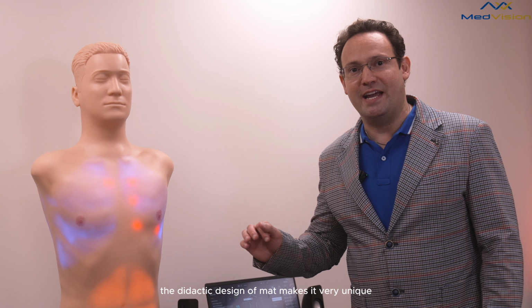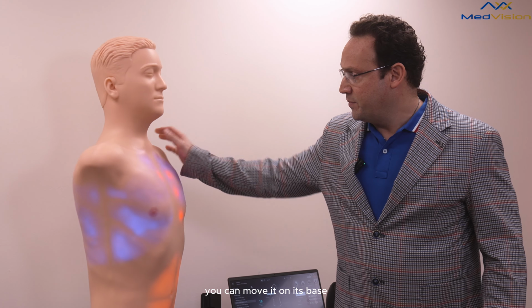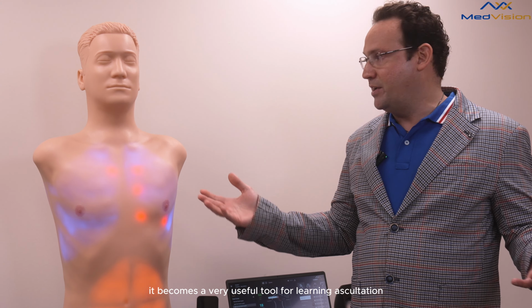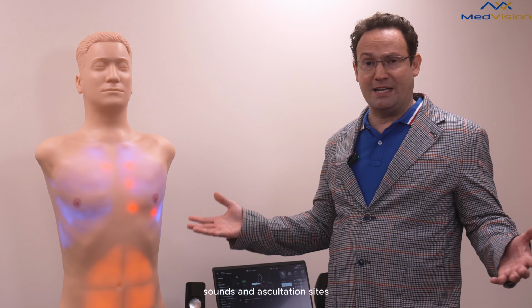The didactic design of MAT makes it very unique, where you can write on the skin, you can move it on its base, and then it offers 3 modalities of learning with the visual learning, auditory learning, and haptic learning. It becomes a very useful tool for learning auscultation sounds and auscultation sites.